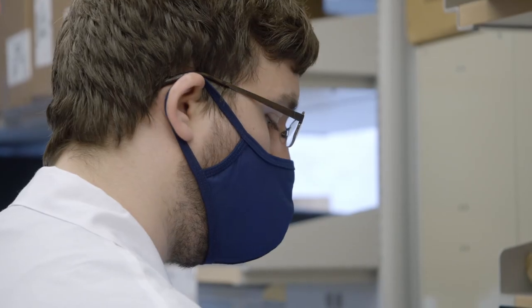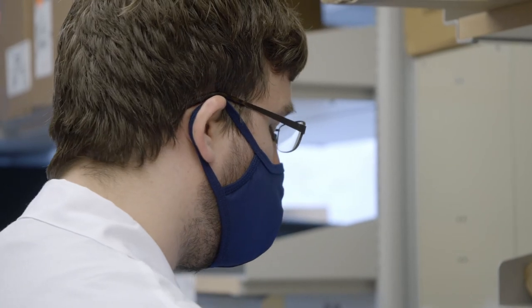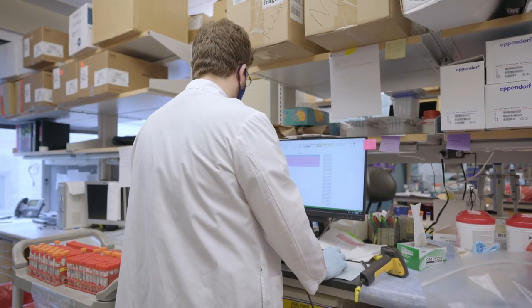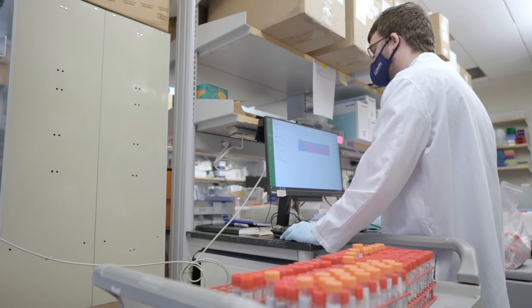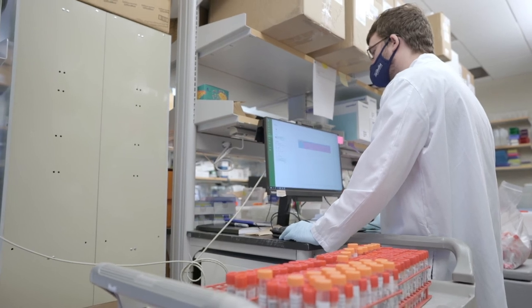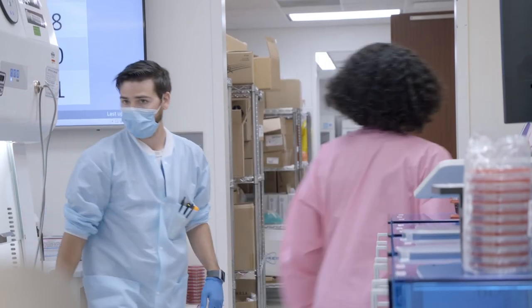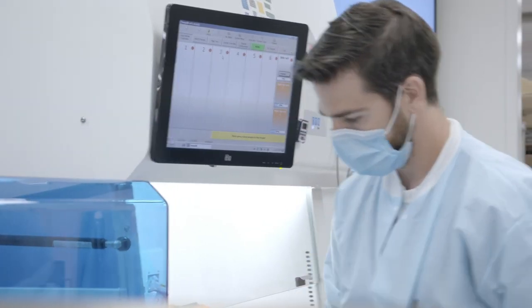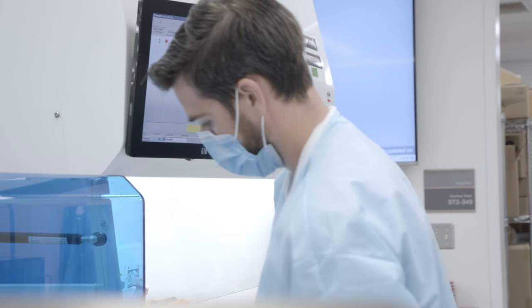The only thing I keep pressing or trying to reiterate to people, we are doing everything we can here to deliver care to our patients, to be safe. We have billboards that say it's safe and smart to see a doctor. You can see all of our employees are wearing masks. And we are here for the health of Houston and Texas. And we're here to do the cultures and perform the work for people who need care.